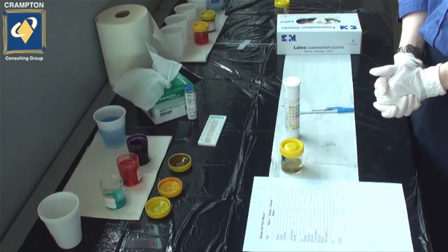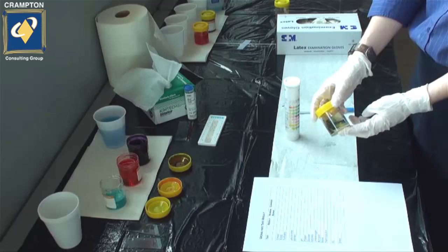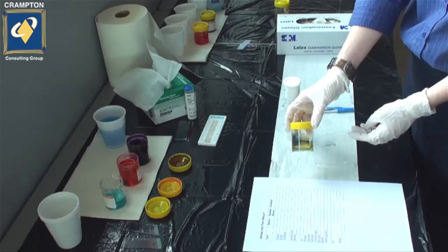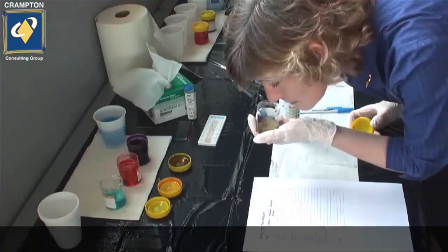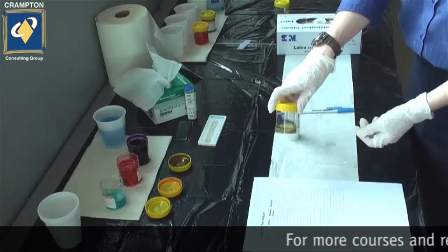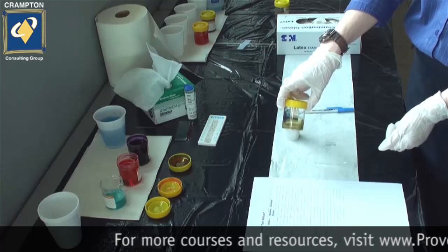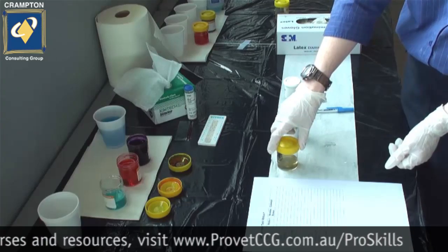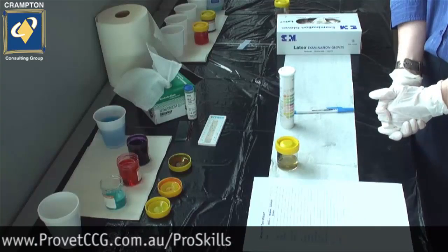We generally do an organoleptic test of urine. For this, we have to examine the colour. Urine should be a nice clear yellow colour. We also check the smell. We're looking for sweet acrid smells which can indicate bacteria in the urine. A putrid smell can indicate that the urine is very old. There are also some drugs that can be picked up in the smell of urine, such as vitamin B12.